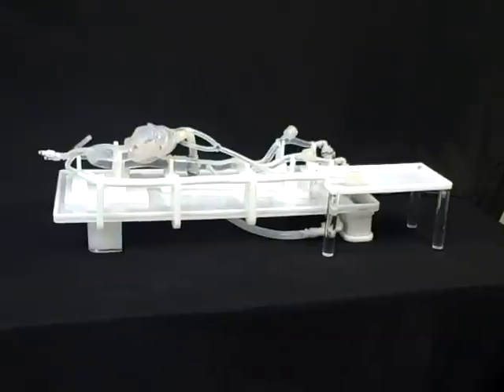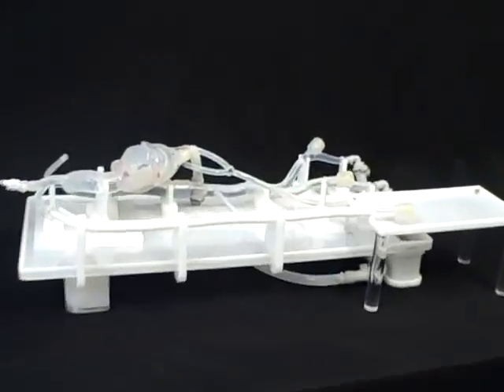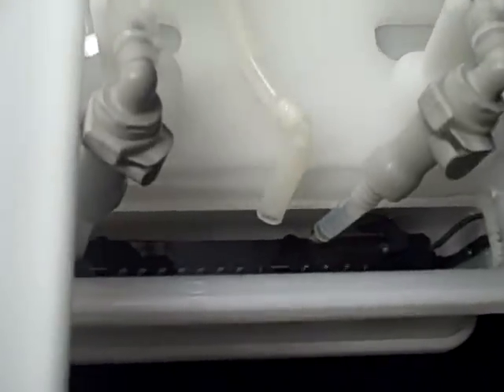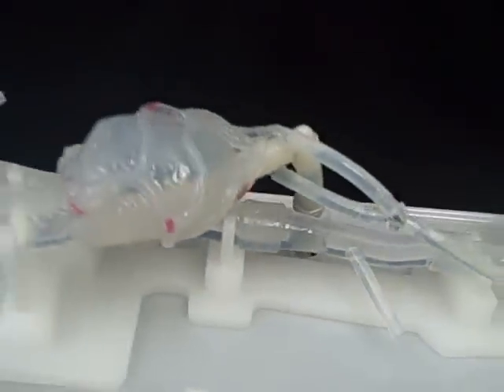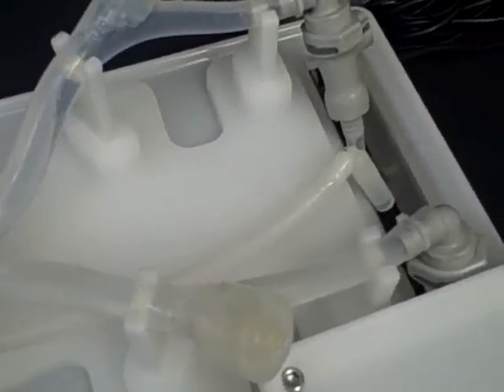Here's Mansell Design's aorta model set up on top of the integrated wet table. The system is running right now. It has lubricious fluid that's being heated and then pumped from underneath the table, up into the aorta, and then flows back out distally through the iliacs. And then also a small amount of flow coming out of the distal ends of the coronaries.